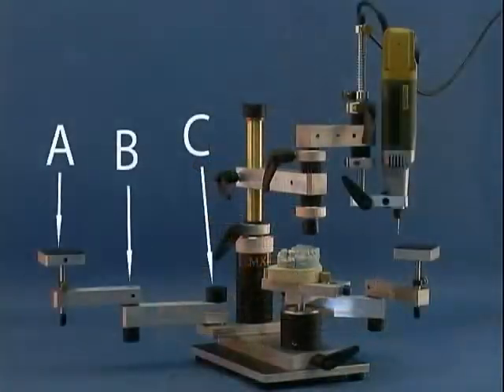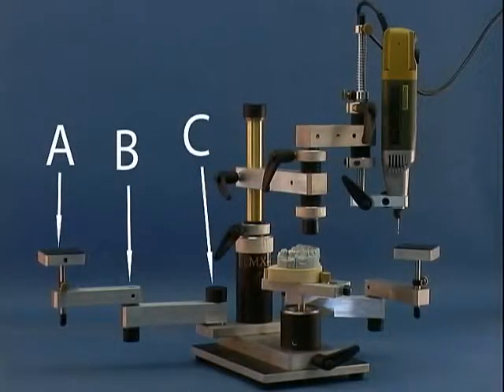The handrest has three joints. A, the joint your hand rests on. B, the middle joint. And C, where it attaches to its base.